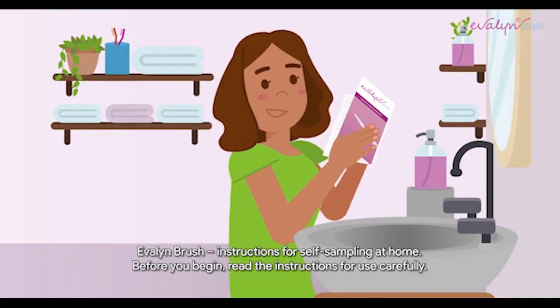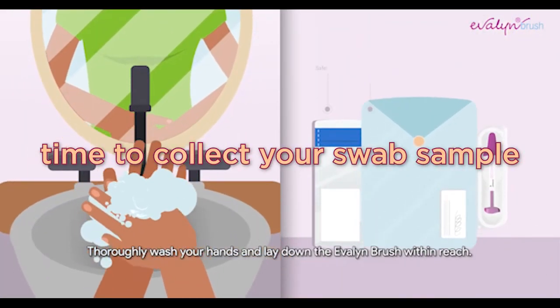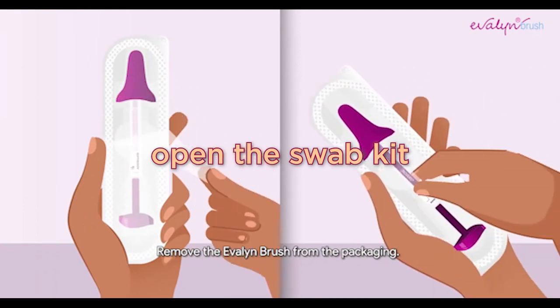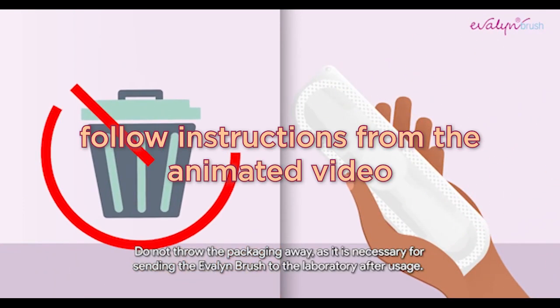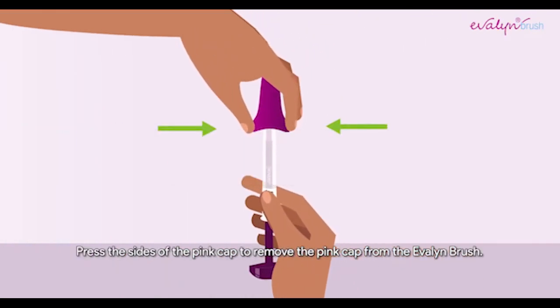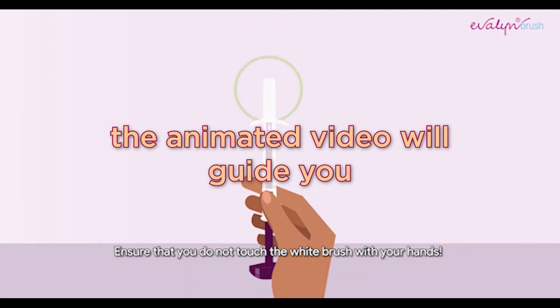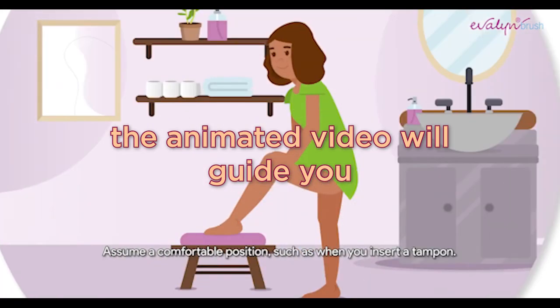With your pathology form completed, it is time to collect your swab sample. Open the swab kit carefully. Follow the instructions from the animated video you watched earlier to ensure the swab collection is correctly performed. It's a straightforward process. The video you watched earlier will guide you every step of the way.